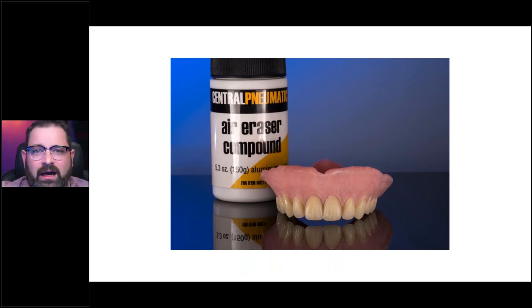Sometimes you can go a little higher — it's up to you. With my sandblaster, I generally don't have any issue getting on the teeth. If you're worried about damaging the actual teeth — for example, if you are using carded teeth and you're afraid of damaging the surface — you can paint a little bit of latex paint on top of the tooth to protect it. You can buy dental latex or makeup latex from Amazon, which is fairly inexpensive.